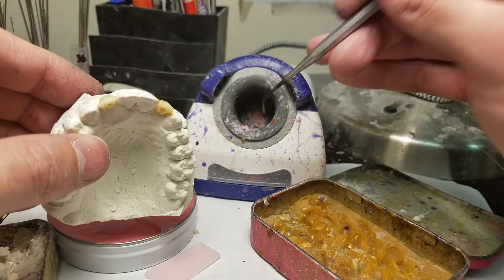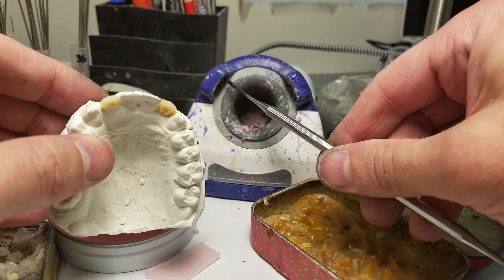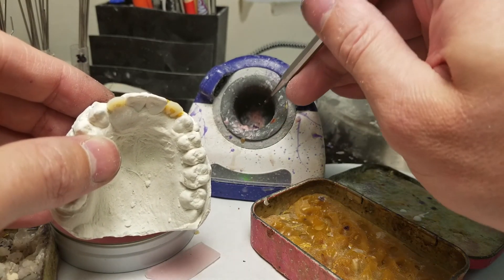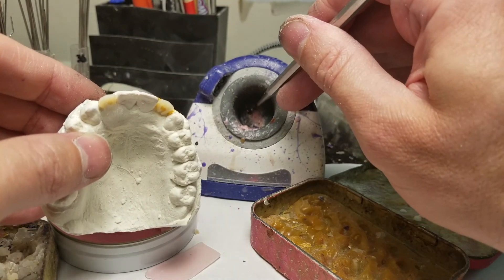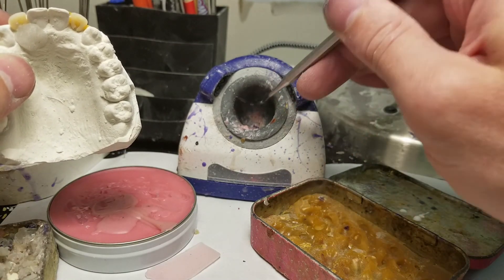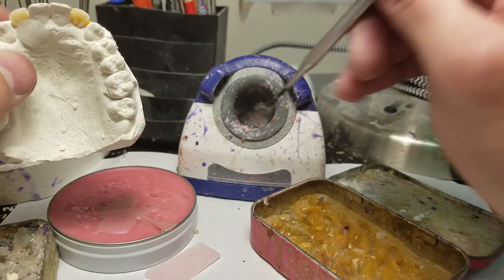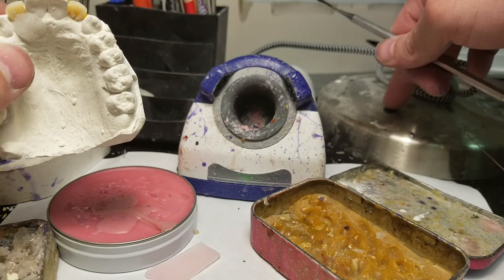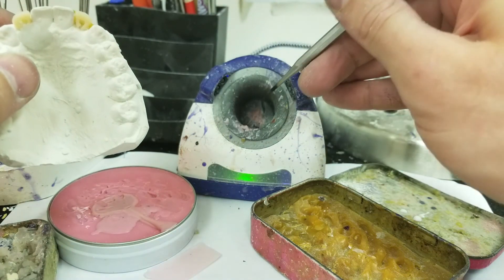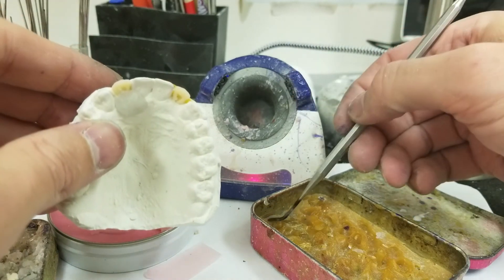I'll put my finger here — I don't know if that's what that's for, but the sensors are there. If you keep it moving, the red light will stay on. It senses the instrument going in there. Let me turn off the light real quick — there you go, you can see the green light now.